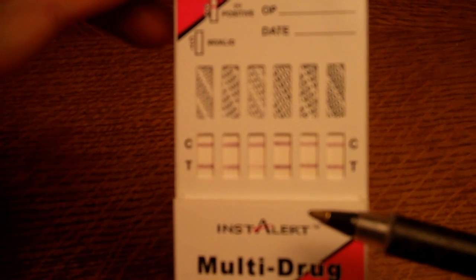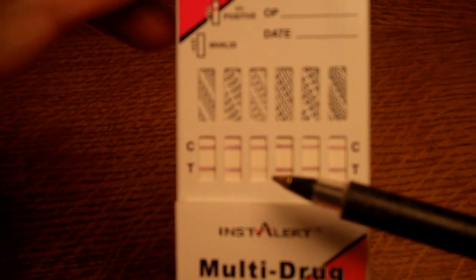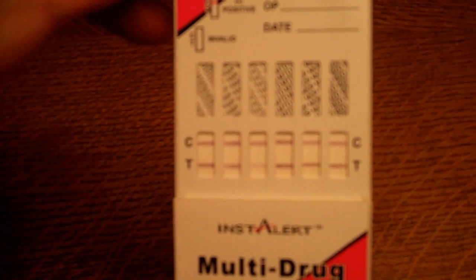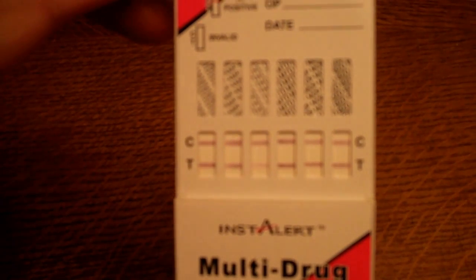You must interpret any visible line as a clear negative and not try to draw any conclusions or inference on the colour, density, saturation, or the way the test line is showing. That's a very good example of how you should interpret test line results — do not draw any inference on the density, saturation, or thickness of the test lines when interpreting your results.